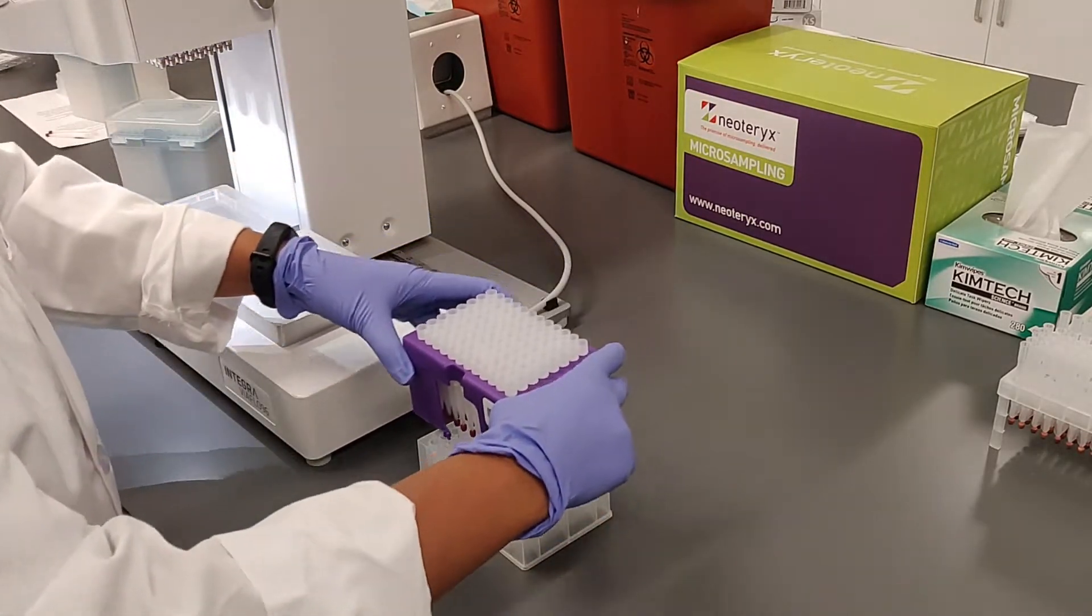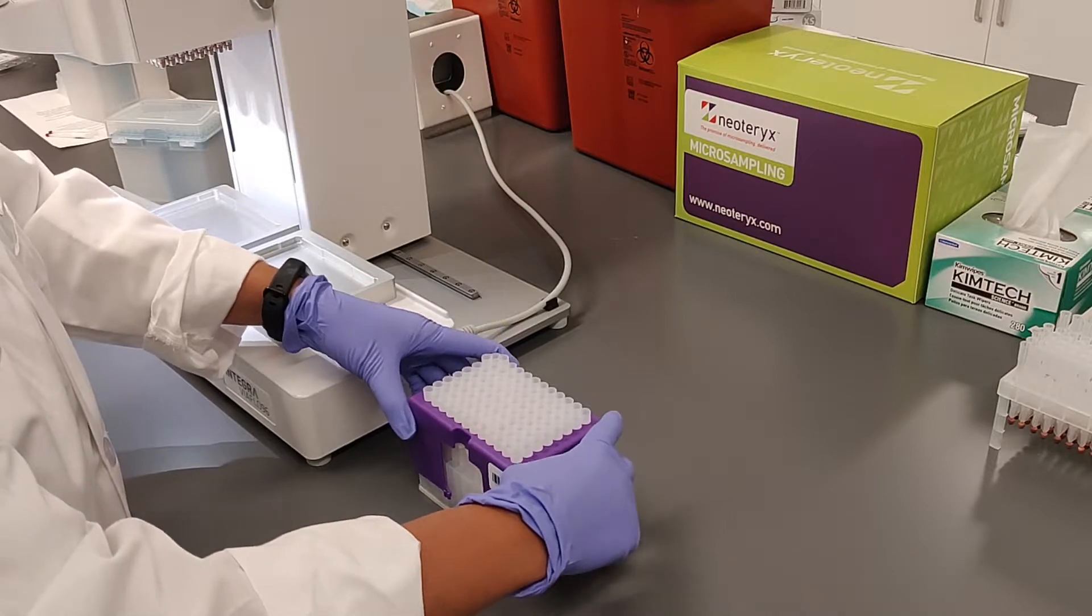Dried blood micro-sample extraction has never been faster, easier, or more convenient.